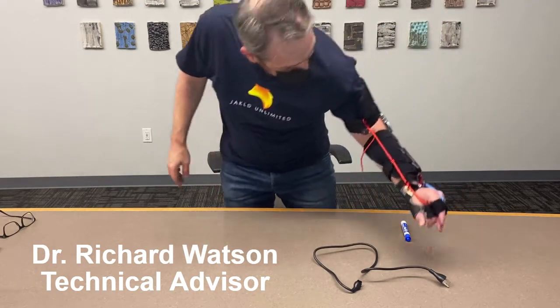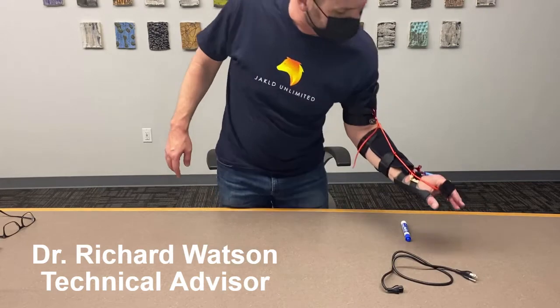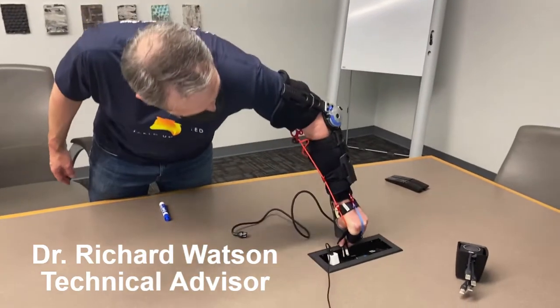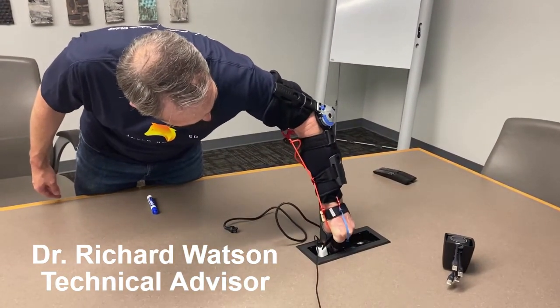Got a plug right here. Let me do it again and not use my fingers. This one's the most awkward plug-in you can imagine.